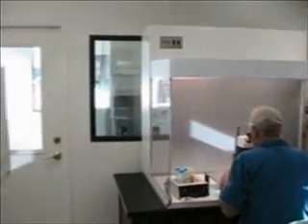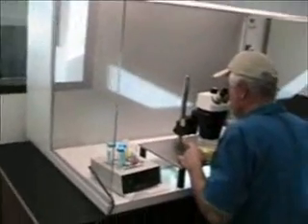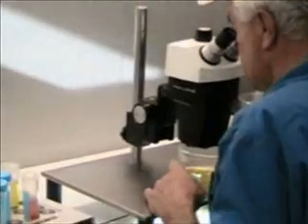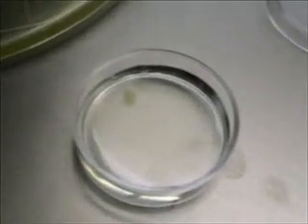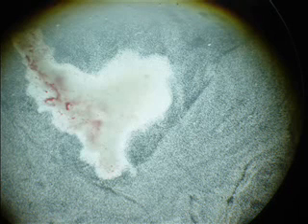The collection vials are then poured into a search dish and searched under a microscope to look for not just the egg, but the egg in a cellular complex known as the cumulus oophorus. The egg itself is a very small microscopic structure, but the cell mass that it is collected in can be seen in this dish — it's actually large enough to be seen with the naked eye. You can see in this picture a little black dot out at the point of the large mass of white cells. That little black dot is the mare's egg or oocyte.